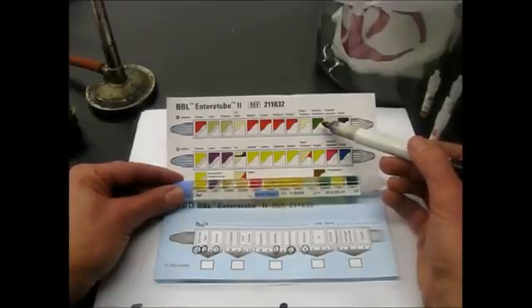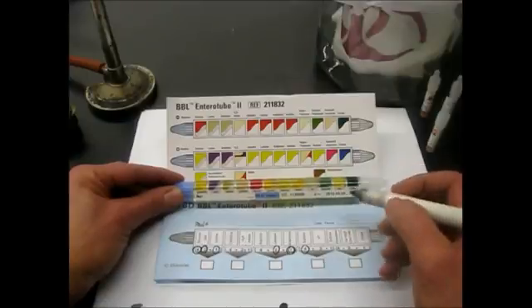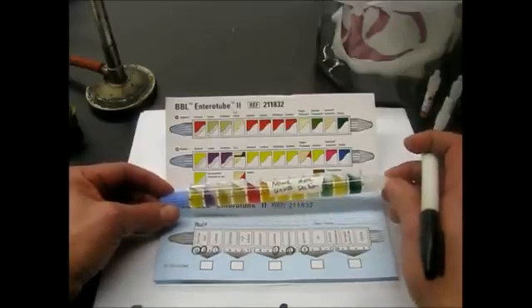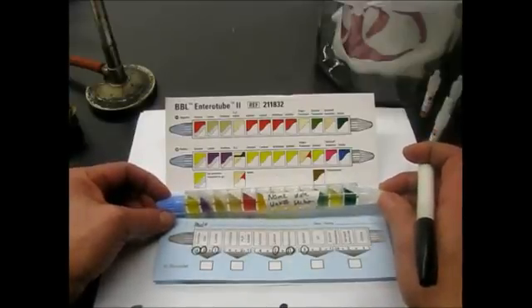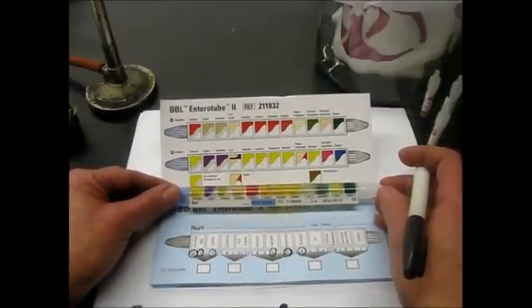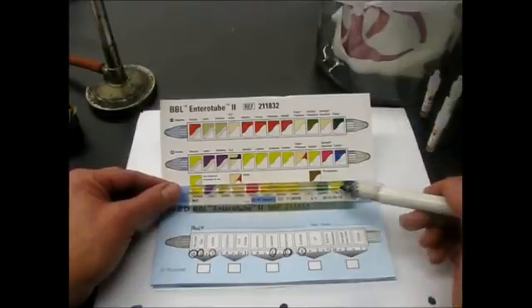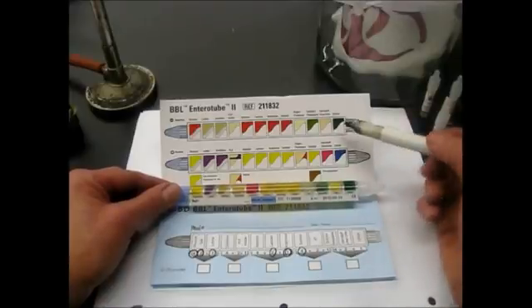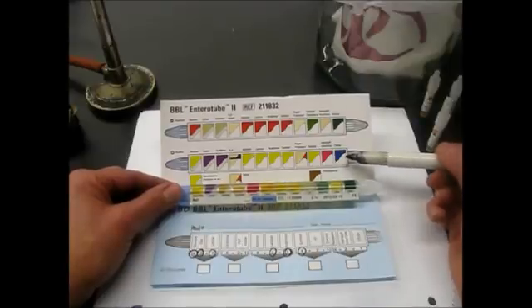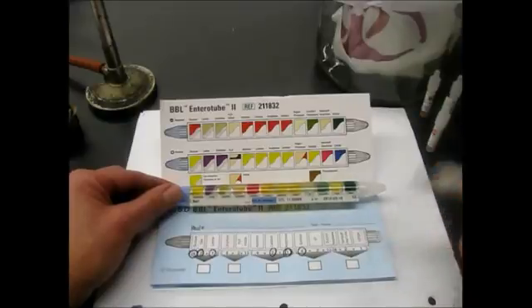For the dulcitol phenylalanine, ours remain that green, so we have a negative dulcitol test. And if there's phenylalanine, there will also be a brown precipitate formed in there, and I don't see that, so that would be negative for phenylalanine. For the urea test, it turns a nice beautiful pink, and ours is negative on that one. And for citrate, just like our Simmons citrate tubes that we used before, it turns a beautiful blue color if it's citrate positive, and ours did not, so that's a negative test.